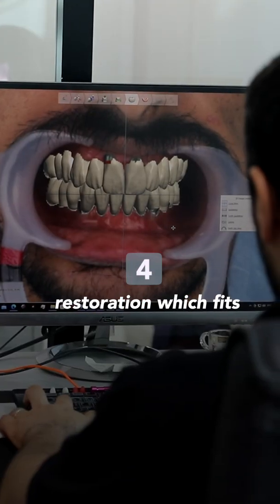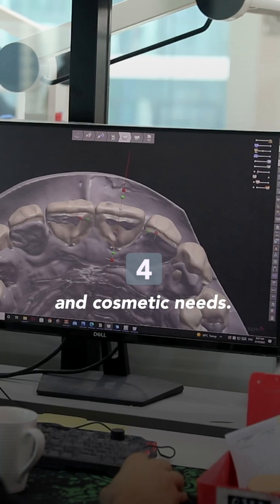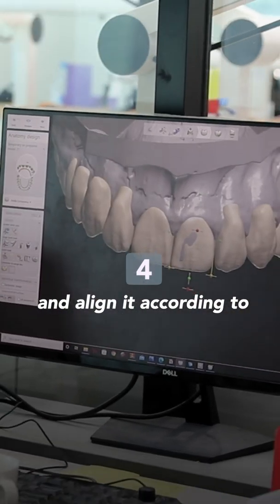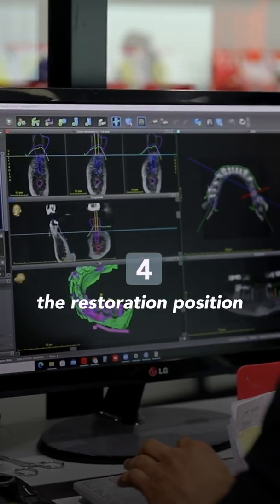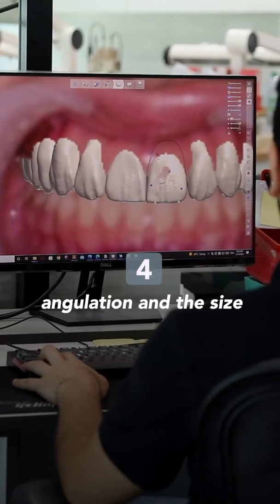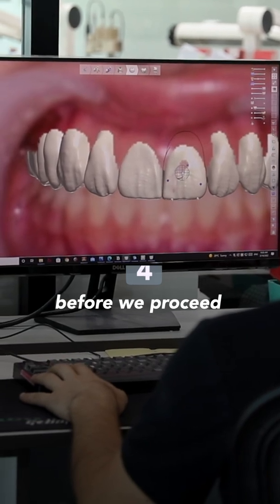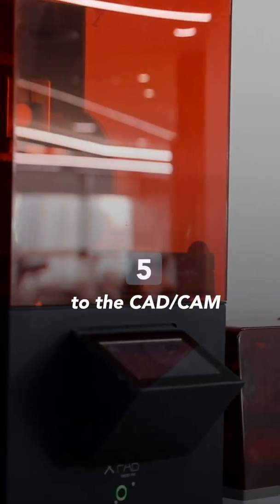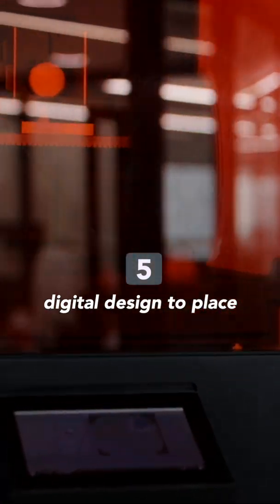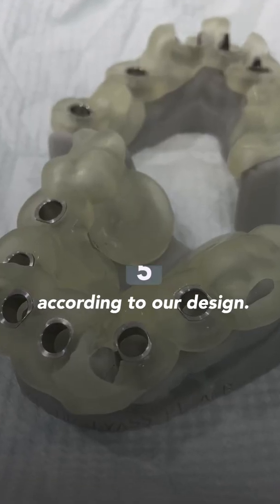Digital design of the restoration fits the patient's bite and cosmetic needs. Then we virtually place the dental implant and align it according to the restoration position and available bone. In this step we can choose the position, angulation, and the size of the implant before we proceed. Then we proceed with CAD/CAM surgical guide fabrication, which translates all the digital design to place the dental implant exactly according to our design.